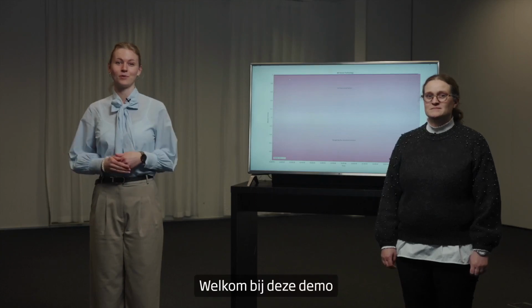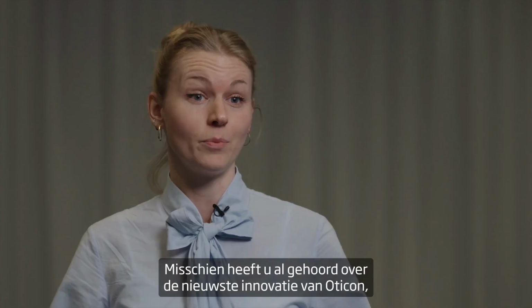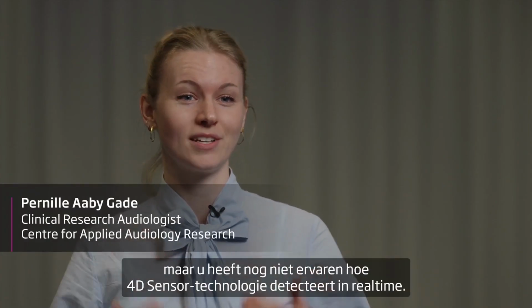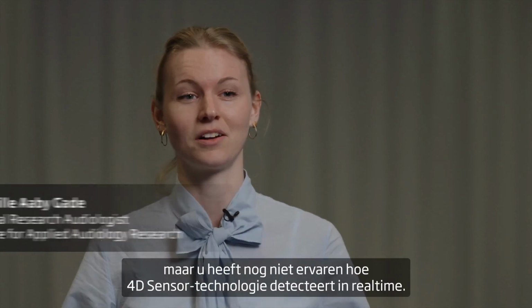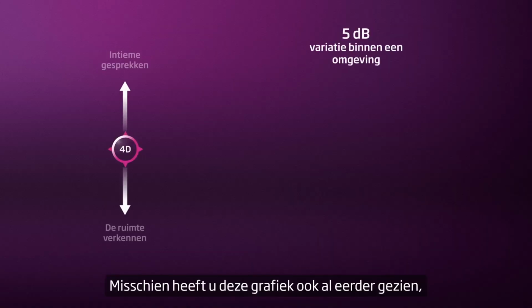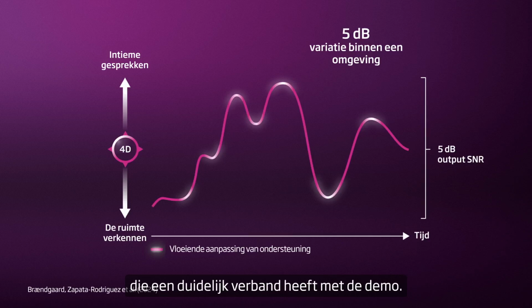Welcome to this demo of the 4D sensor technology in Oticon Intent. You may already have heard about the latest innovation from Oticon, but you are still to experience how 4D sensor technology detects in real time. You may also have seen this graph before, which has a clear connection to the demo. The purpose of both is to illustrate how Oticon Intent seamlessly adapts its support.